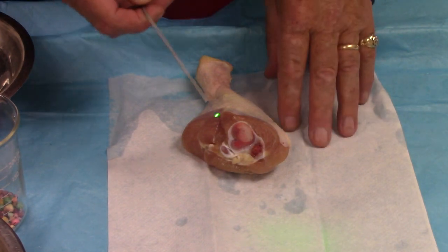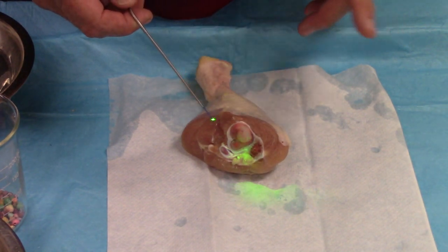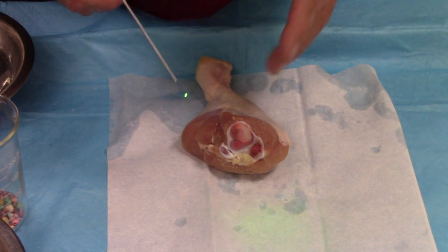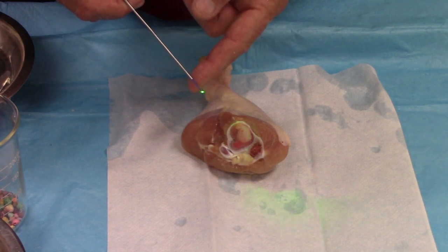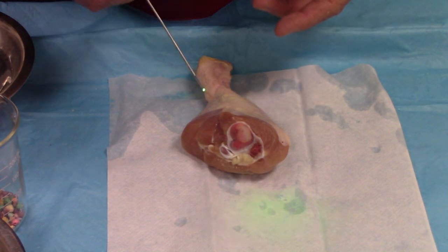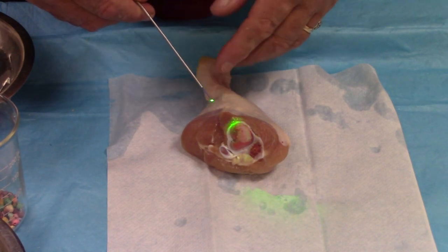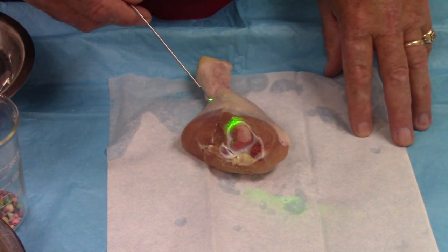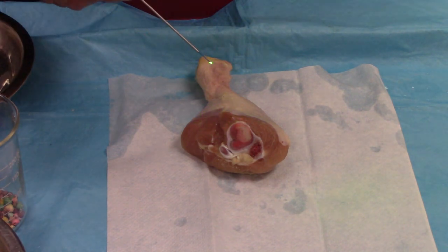Now let's look at the effects on soft tissue like dissecting versus hard tissue like bone. At this point I still have it set to the high settings — 2.5 joules and six times per second. Before we were working underwater, which keeps the tip of the fiber cool and the plastic doesn't ball up. Here we're in air, as if you were doing a laparoscopy or some type of pulmonary endoscopy. These high energies really will mess up the tip, but we're going to do that anyway just to show you the effects. You would actually turn your joule setting down for air applications.